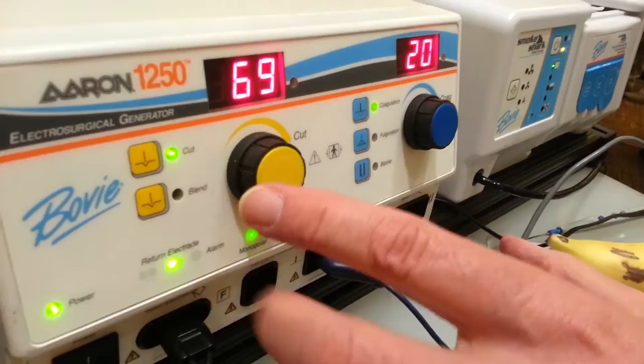Now, if we come over to the front of the generator here, I have five settings. I have a pure cut, which just cuts just like a scalpel does.